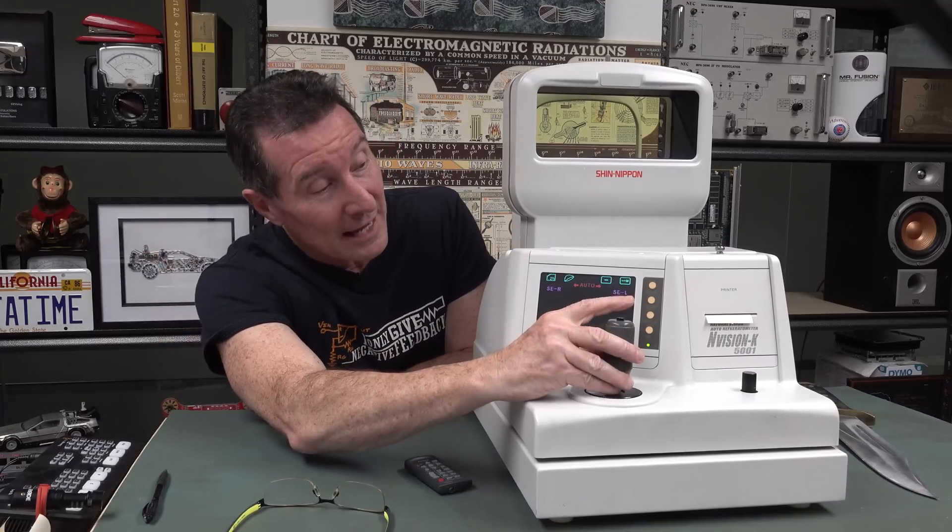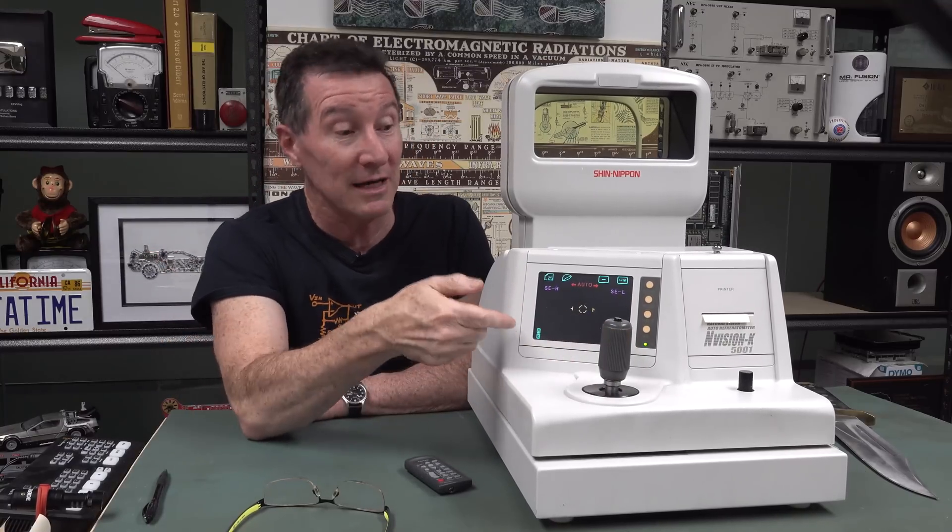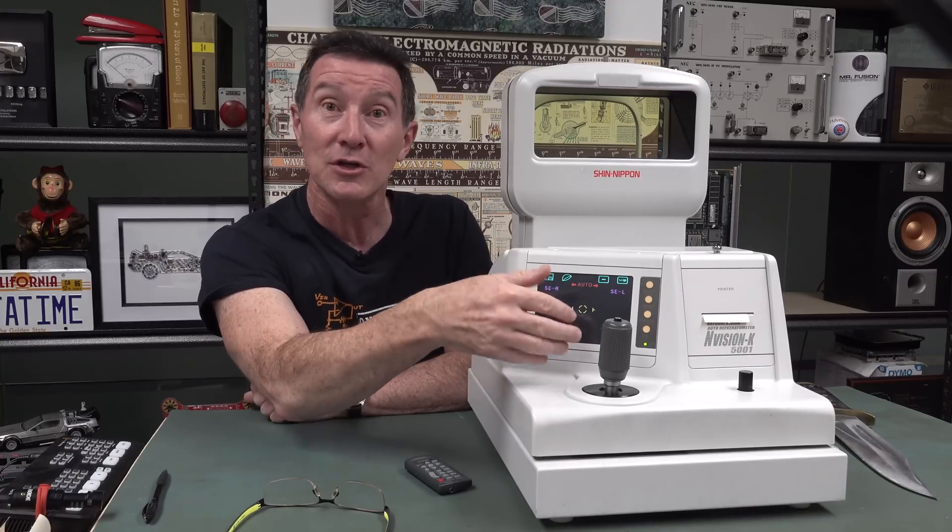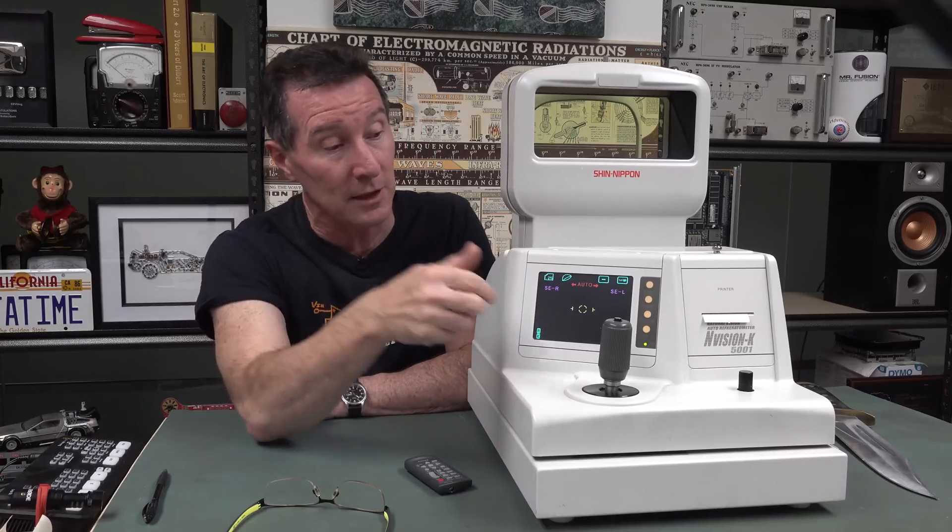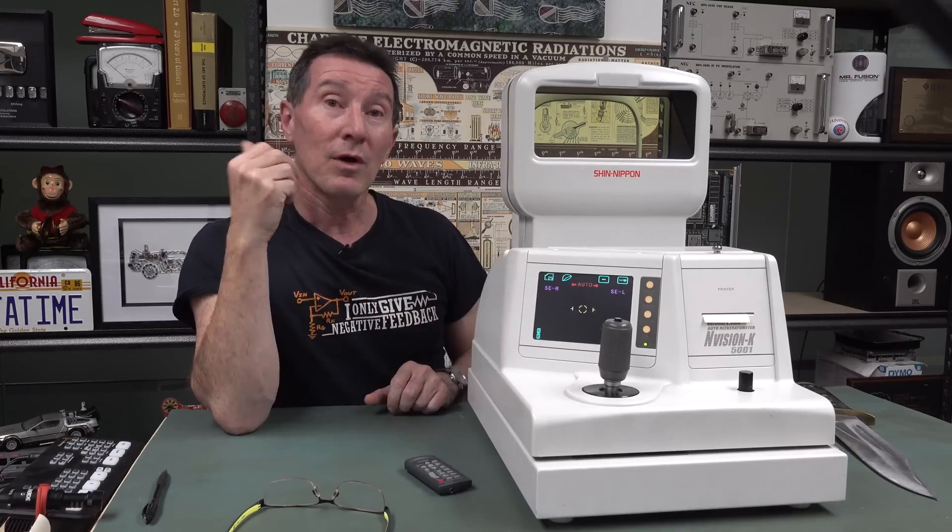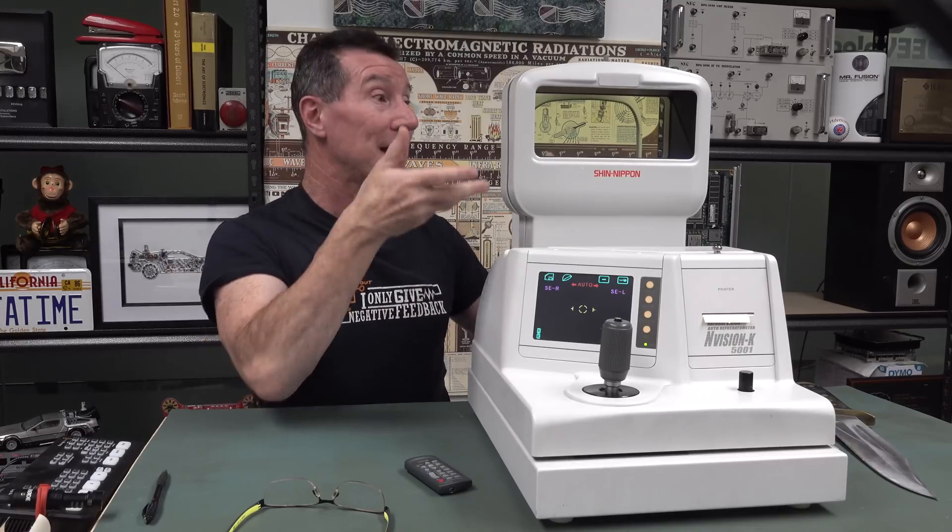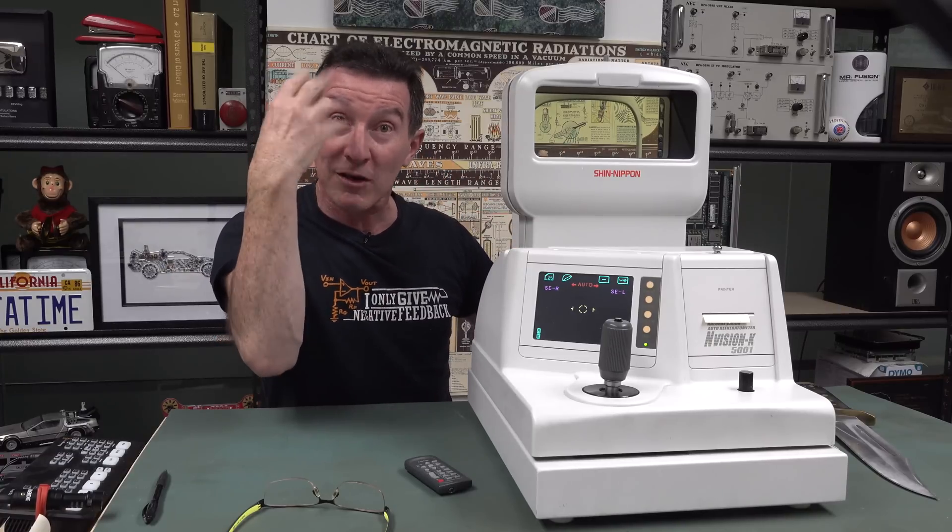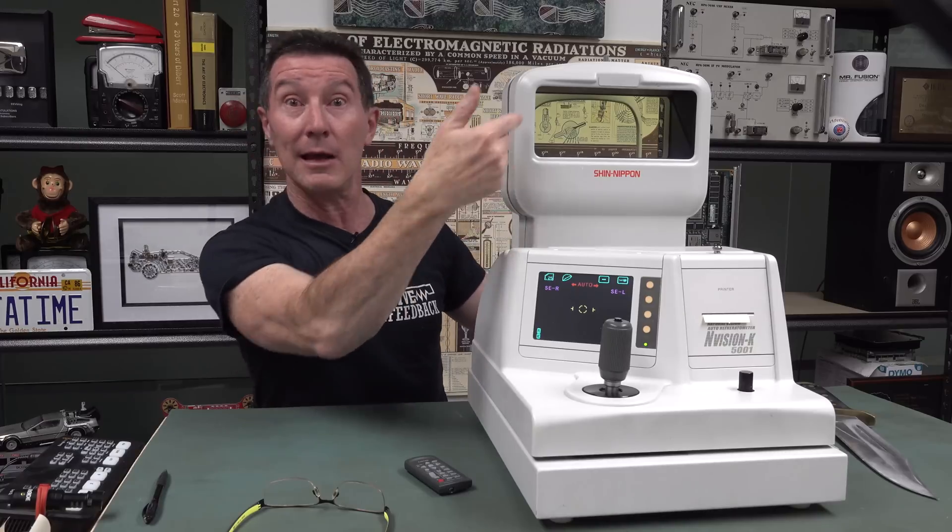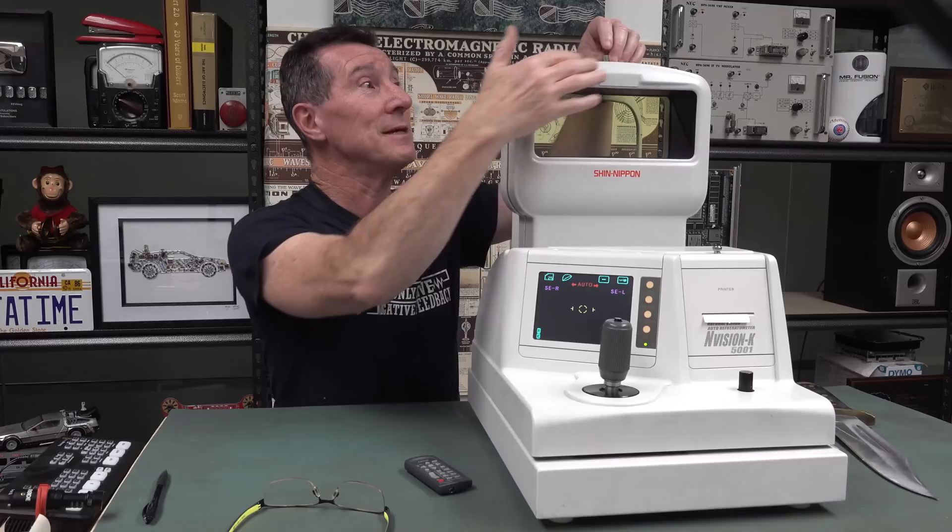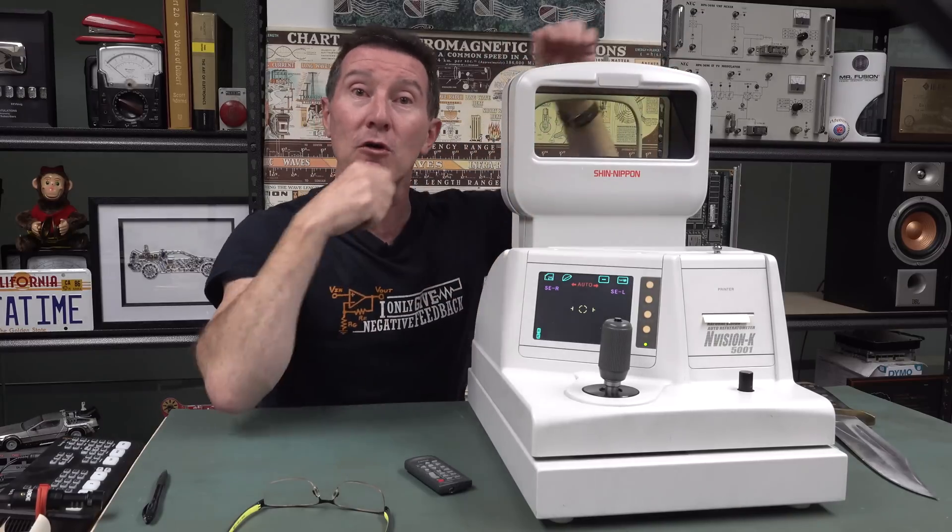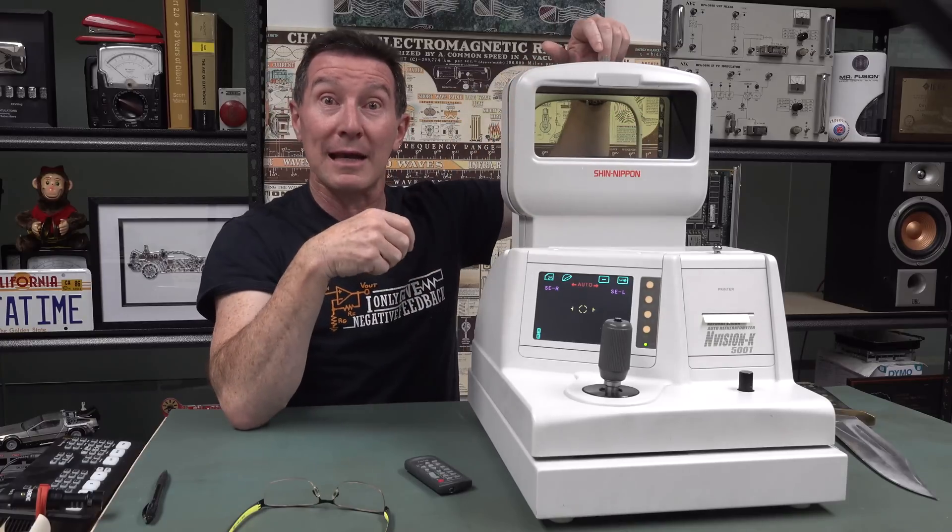But anyway, it does have newfangled things like a 5.6-inch color LCD screen that allows the optometrist to actually view the eyeball and view the pupil. And you can measure your pupil size and you can do all sorts of things. And what it does is basically just bounces infrared light off the back of the eye. And from that, you can actually measure all this stuff. I'm sure there's a lot of science involved in it. It's basically got a camera in the bottom with an infrared light source that can pulse into your eye and reflect off the back of your eyeball. And this one, because I got it at an auction, it's missing the stem which comes out here with like a focus chart. You put a focus chart at a certain distance, and then you ask the patient to focus on the card at a distance.